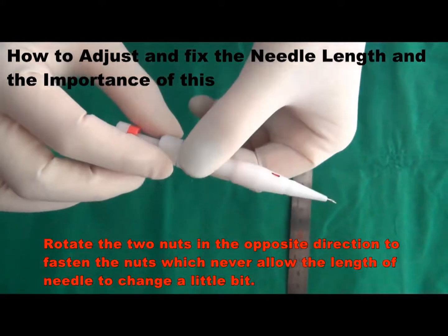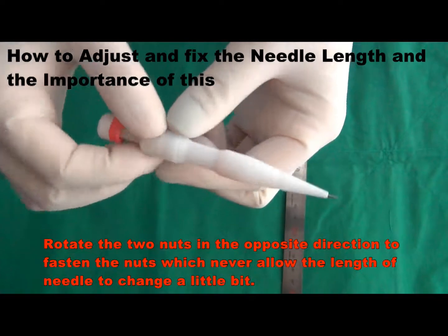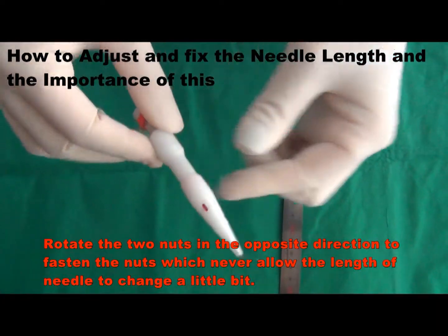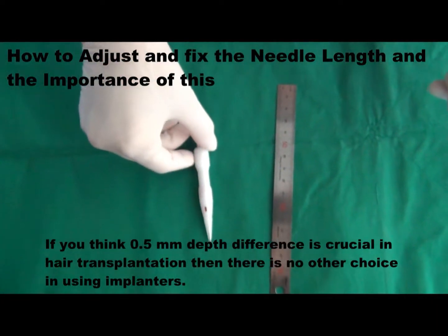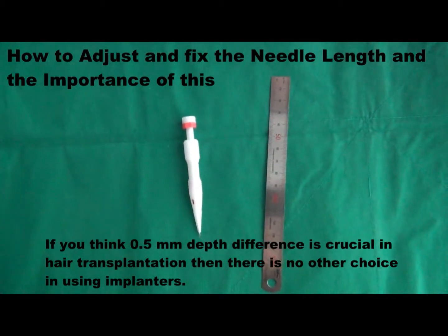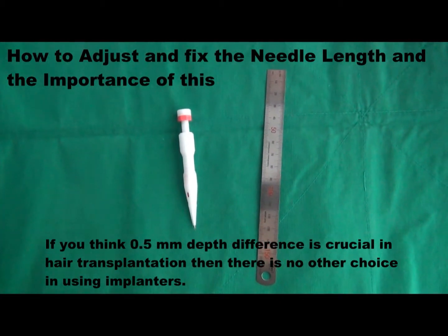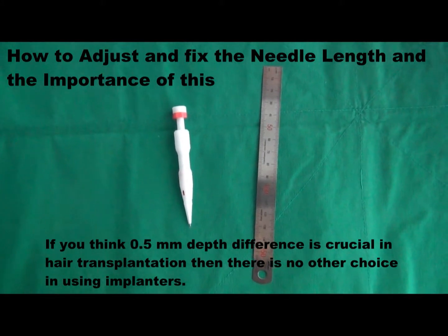Rotate the two nuts in the opposite direction to fasten the nuts, which prevents the needle length from changing at all. If you think a 0.5 mm depth difference is crucial in hair transplantation, then there is no other choice among implanters.